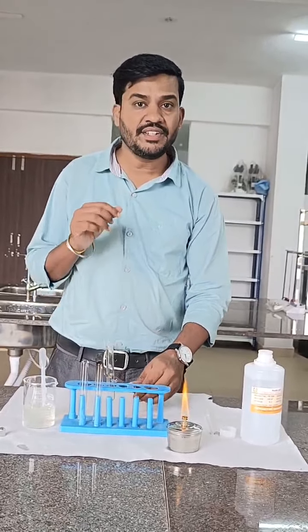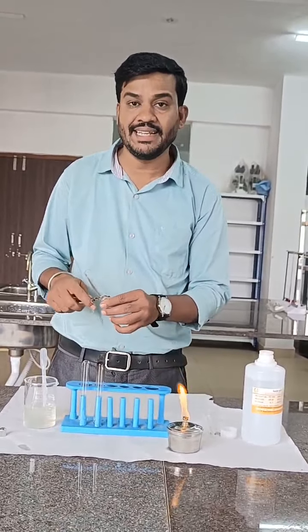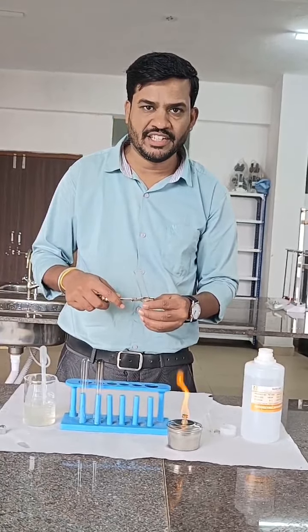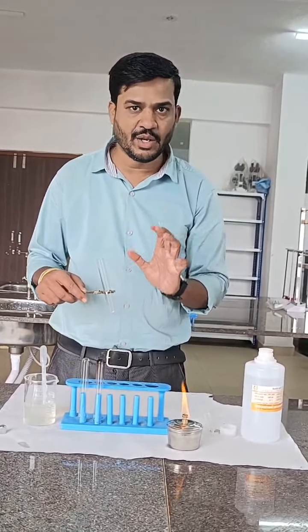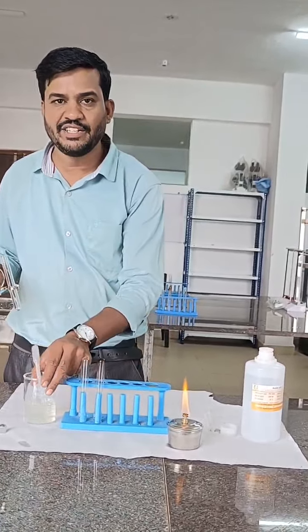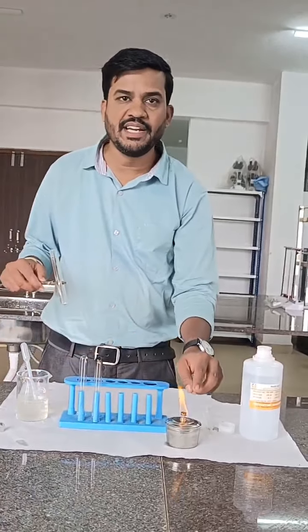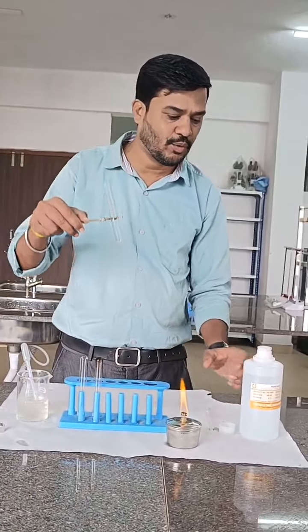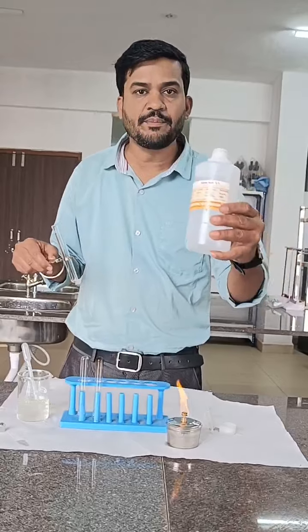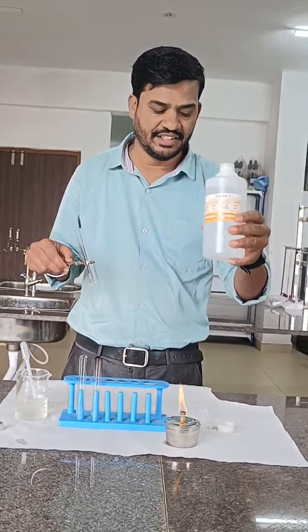So the first test we are going to do is the heat coagulation test. The things required for that are the patient urine sample, a spirit lamp, a test tube with a test tube holder, and 3% glacial acetic acid.